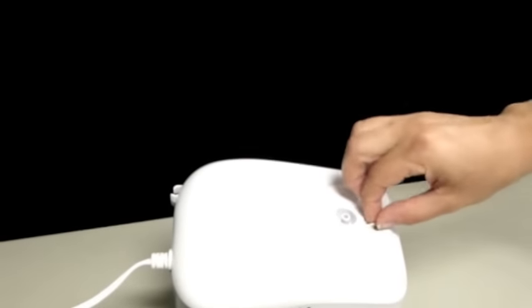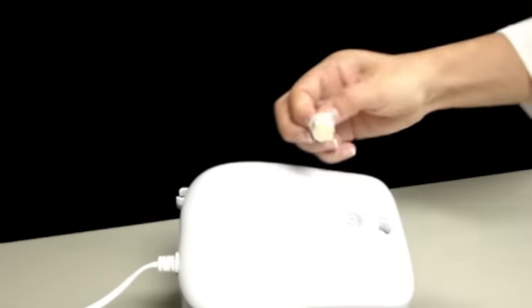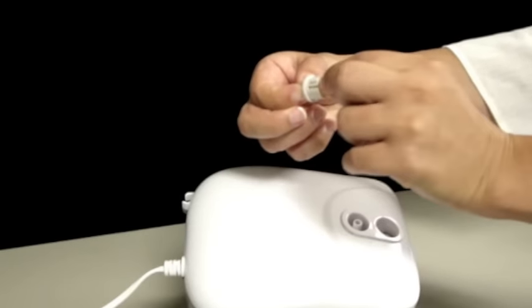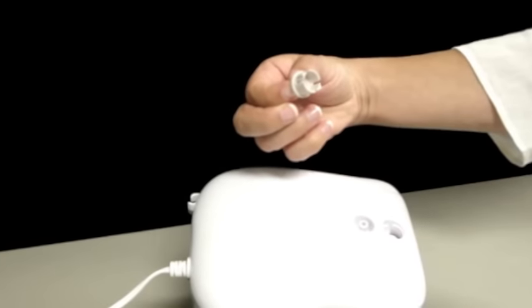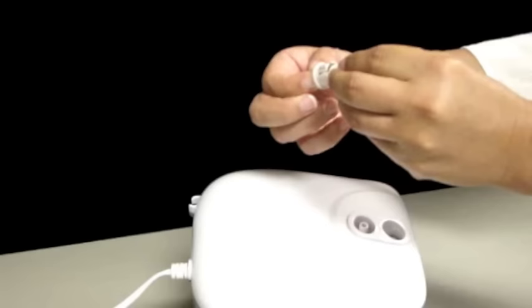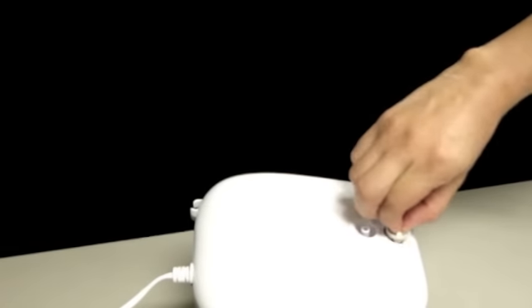Remember to check your nebulizer's air filters often. Change out the filter regularly depending on how many treatments you do each day, as a dirty filter will affect the efficiency of your treatment and the lifetime of your compressor.